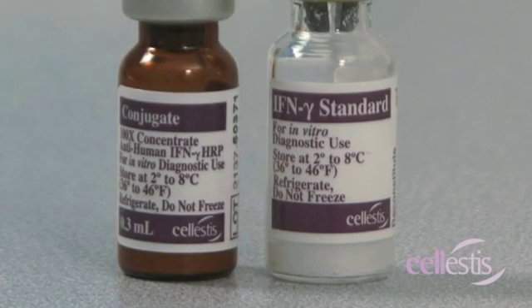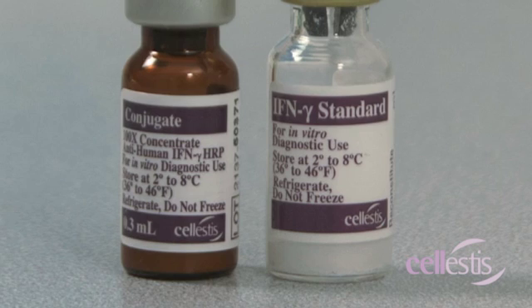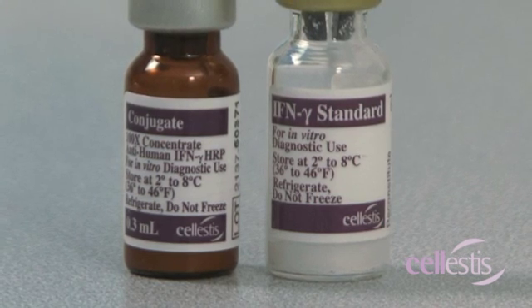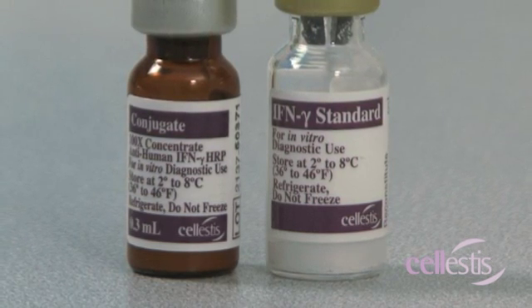When using a kit for the first time, the conjugate concentrate and the freeze-dried standard both need to be reconstituted.